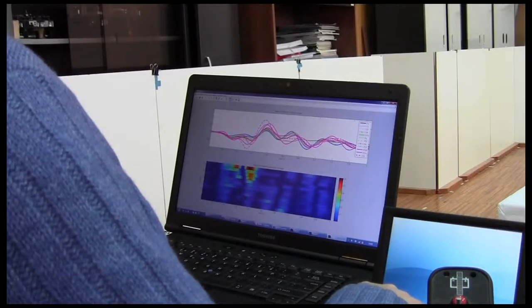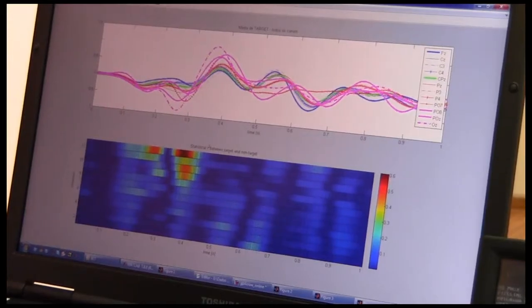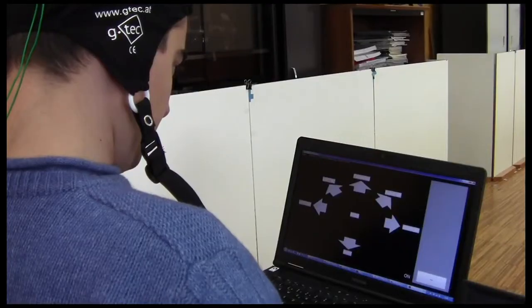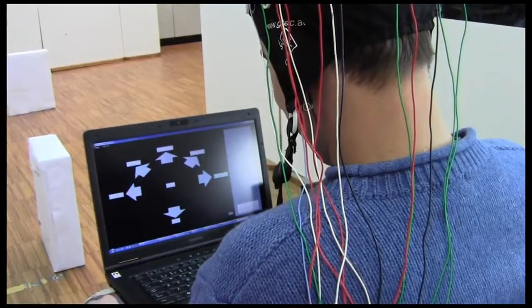The user steers the wheelchair through a P300-based BCI by focusing, during a certain number of repetitions, a simple flash paradigm which comprises all possible steering commands.